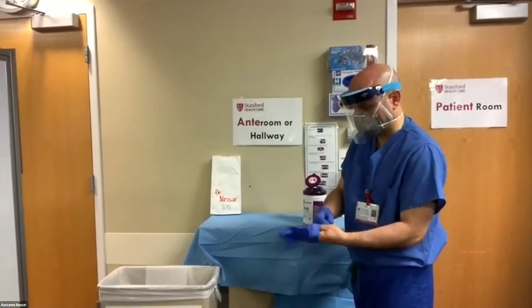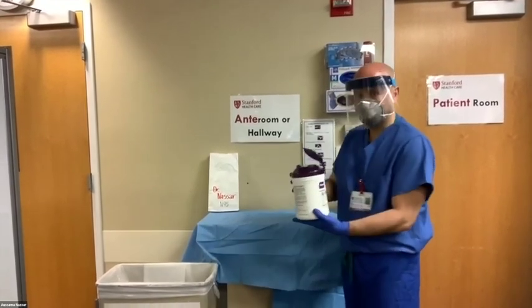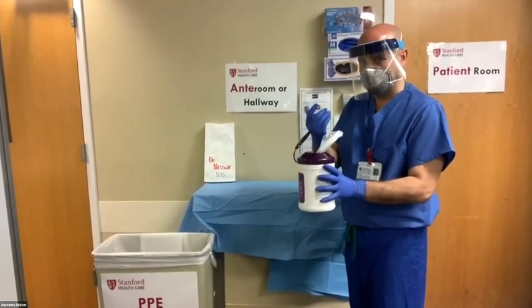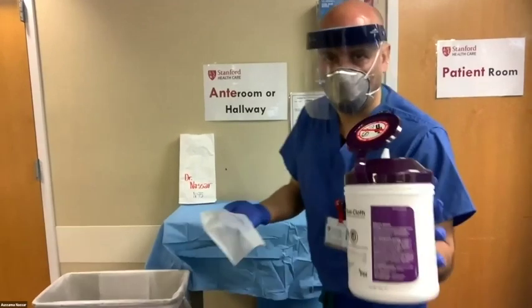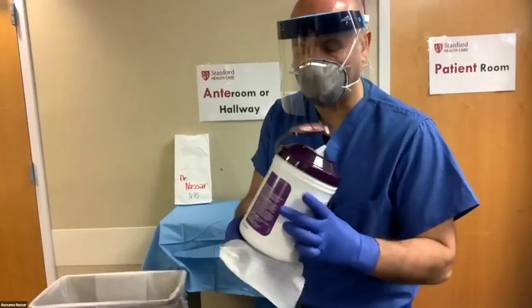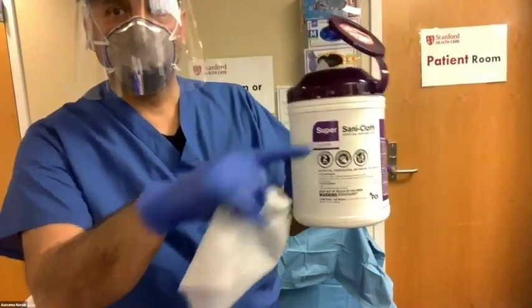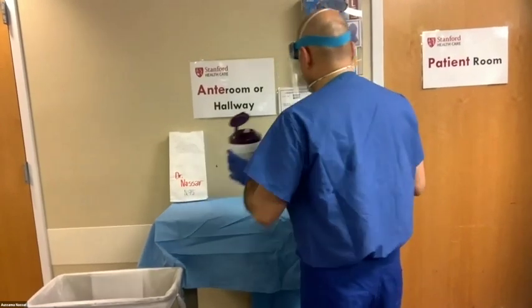The next step is to identify a designated clean area to rest the face shield on, then use appropriate antibacterial wipes. There should be a specified area on each ward for you to do this. Use the purple Super Sani-cloth wipes, as these are most bactericidal. The Super Sani-cloth has a short dwell time — surfaces should stay moist for two minutes to achieve complete disinfection.